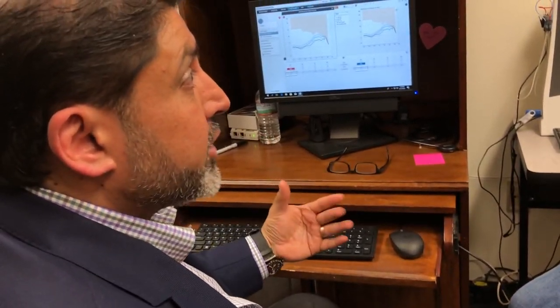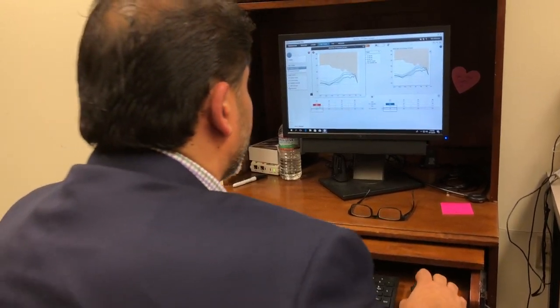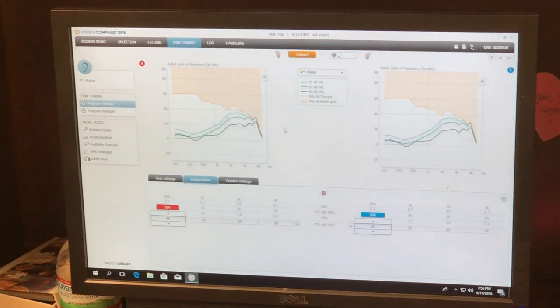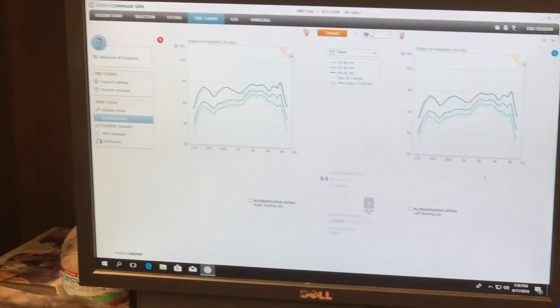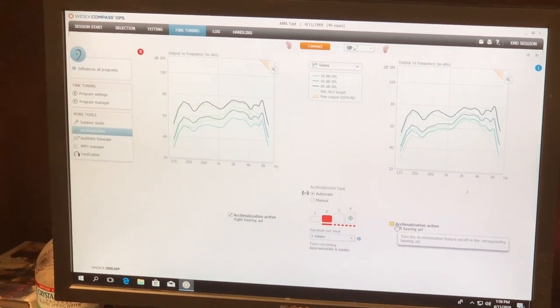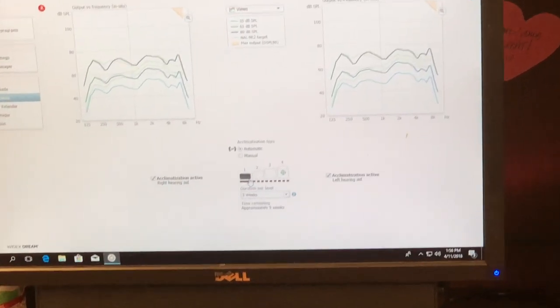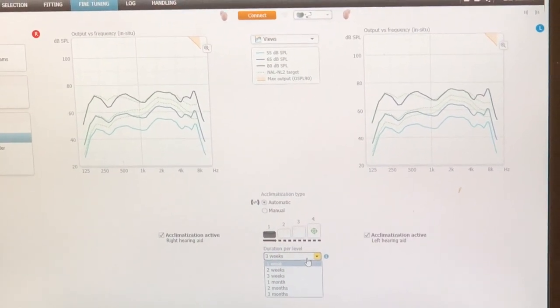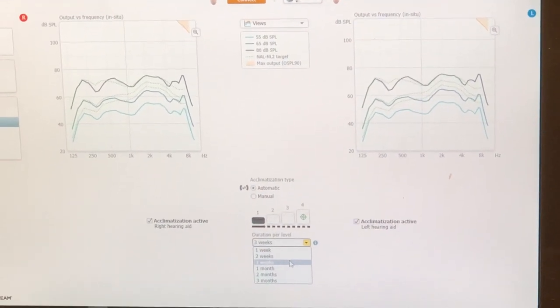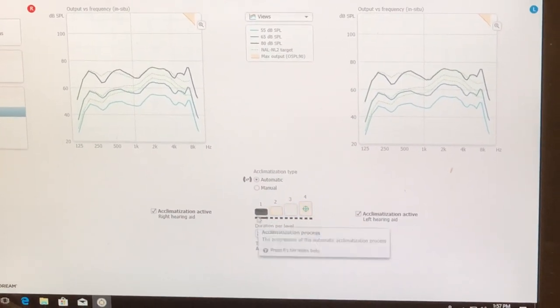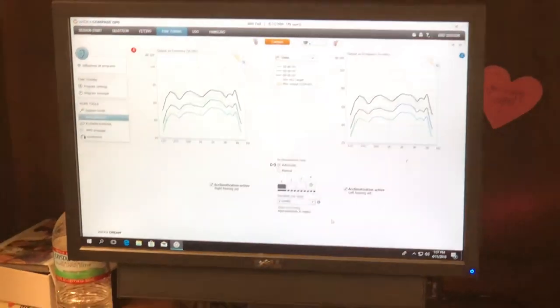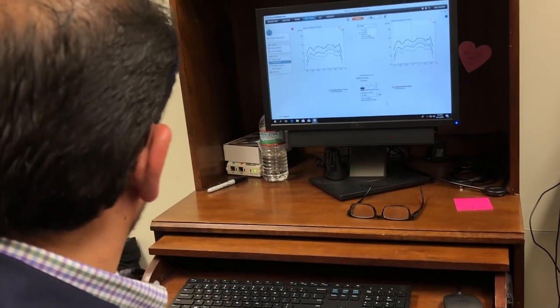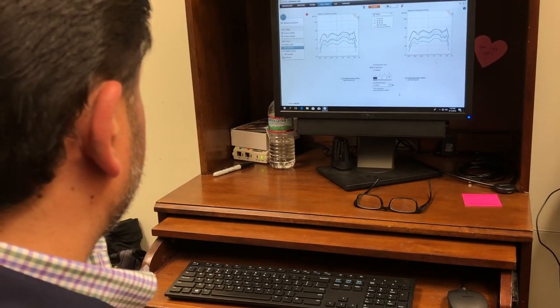So these are the things that you would do before the patient comes in. Because you're going to set this thing based on some of the measurements that you're going to predetermine. So let's now assume that all this is fit well. I can go to acclimatization. And I have it at 4. First time user, acclimatization is active. It is active. And I'm going to turn it down. It's going to reduce the gain. And what it can do is it can automatically increase the gain for the patient. So I might say, every three weeks or every two weeks, it's automatically going to go from one level to the next level, to the next level. So in two, four, six weeks, you're now fully acclimatized. That's the same thing that Dr. Davis does. It automatically adjusts over the two weeks. Which is why he doesn't set up to 100% gain for the first time. Right. And we're not at 100% here either.